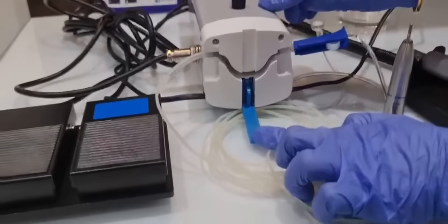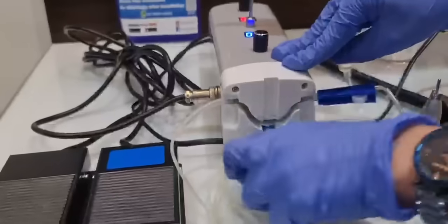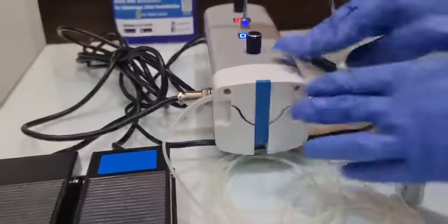You will just push this knob down, and when you attach the tubing here, you can push it up so that it can be secured properly.